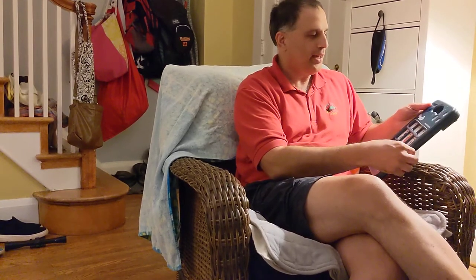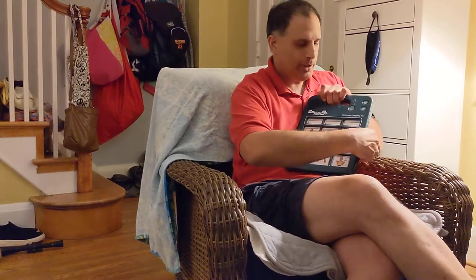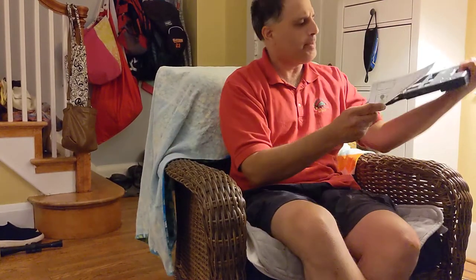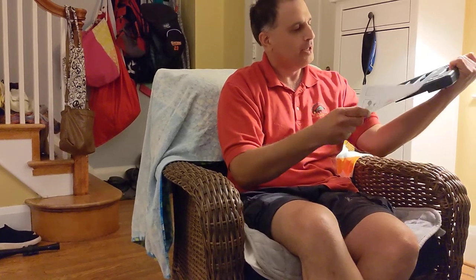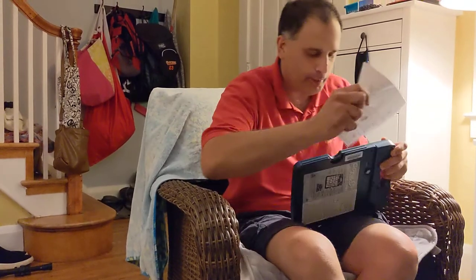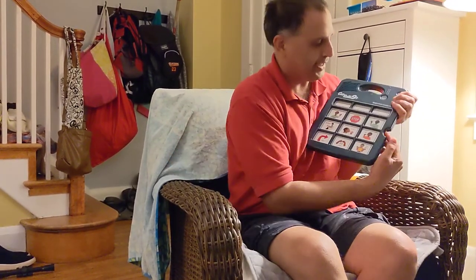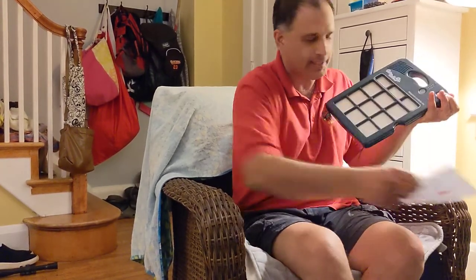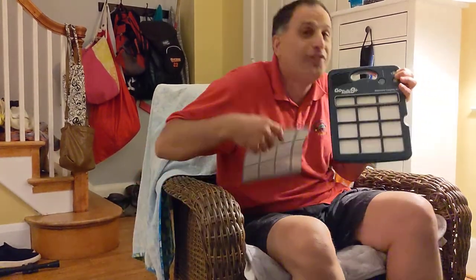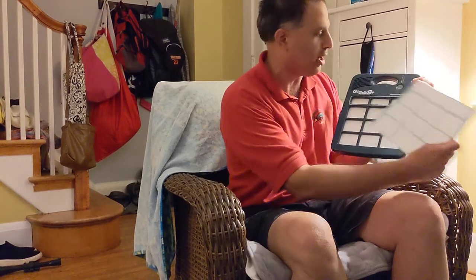I'm going to tell you one more thing. If I wanted to change the words on here, I could take out this card. And if this card keeps coming out — if that's bothering you — something that we do sometimes is, when we have the card in here, we might stick a piece of tape over here to stop it from falling out if that becomes a problem. But I'm going to take this card out and you can use another card. If you're a family that I work with, just ask me and I can give you more cards to stick into your device. They're called overlays.